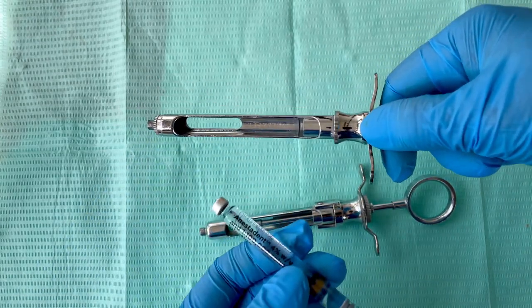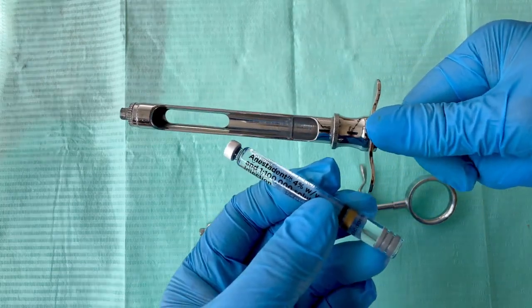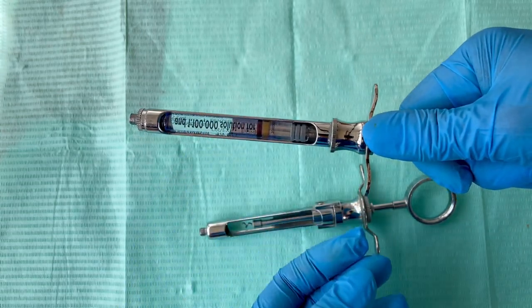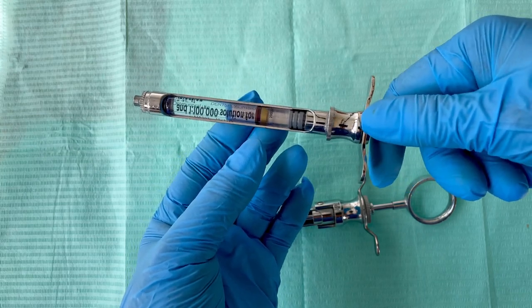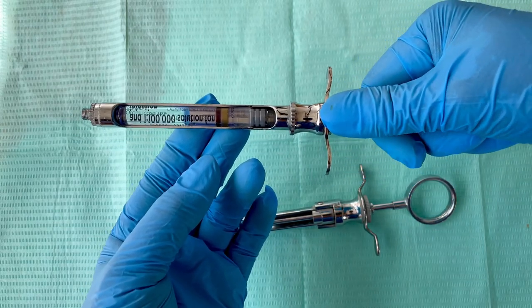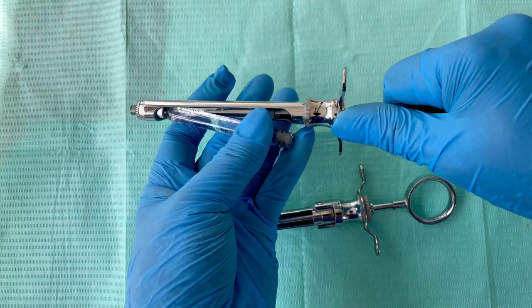Get your cartridge and pull the handle so that you will have enough space to put your cartridge in, like that, then release the handle. To remove the cartridge, pull the handle again and then push the cartridge out.